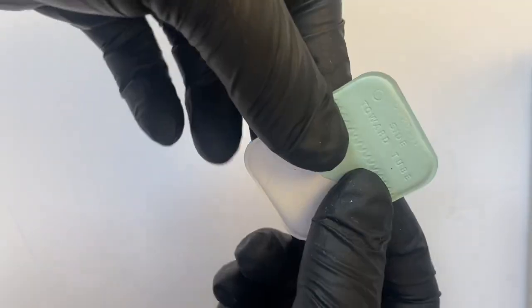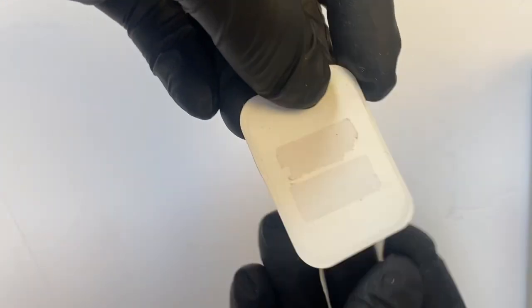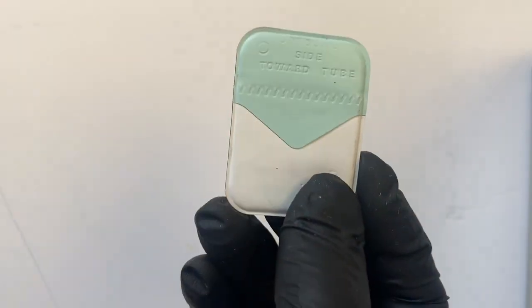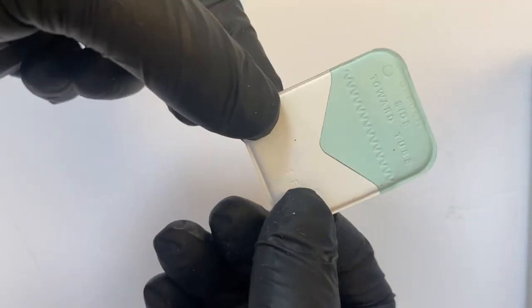I was going through an old box of dental stuff and I found this piece of film. So let's open it and show the different parts of what film is. I don't know if you've ever used film. I haven't used film in an office for several years, but it's kind of fun to see what's in a piece of dental film.